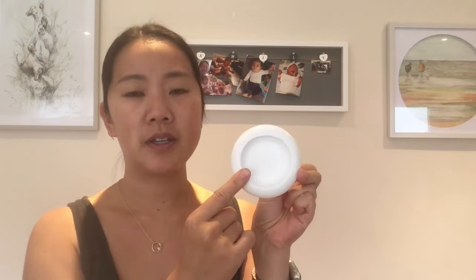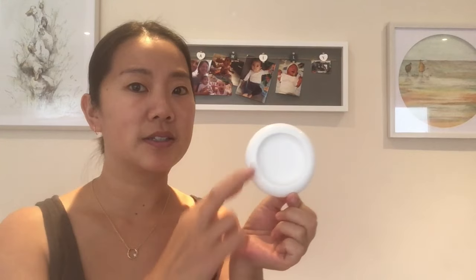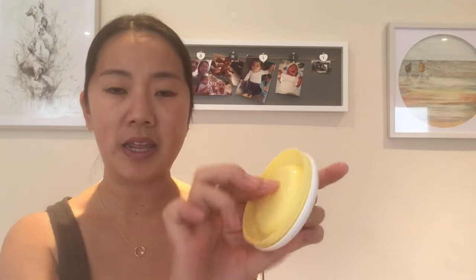One quick little hack: if you have the Avent hand pump, their lid is the exact same size as the lid for the Haakaa pump. Since you have to buy the Haakaa lids separately and they are kind of pricey for what they are, you can use the Avent lid as an alternative — they are the exact same.